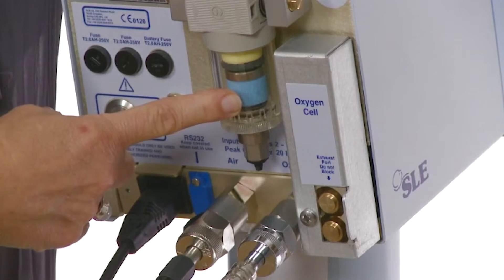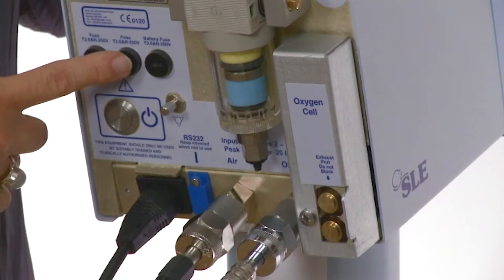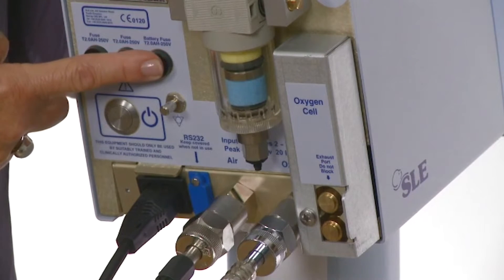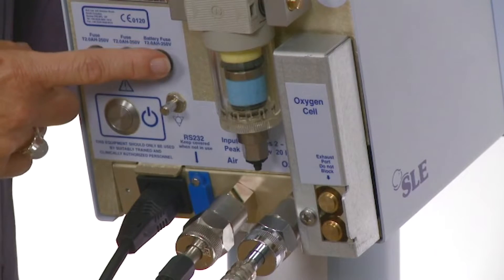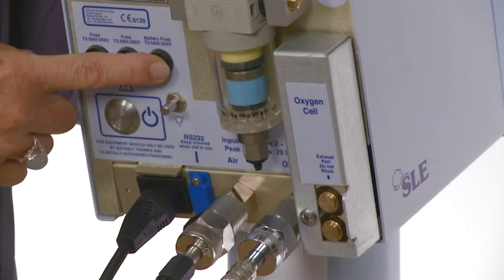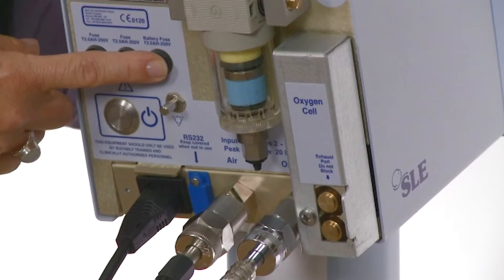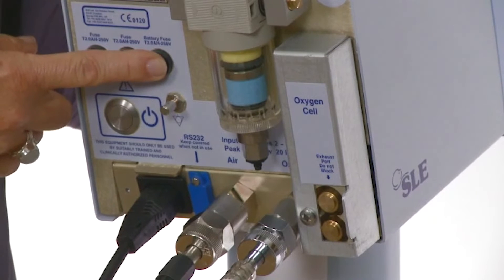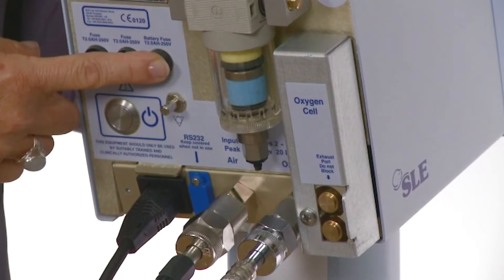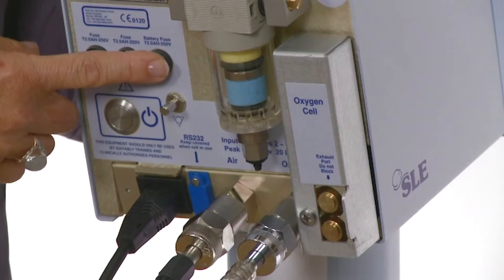To the left of the oxygen cell cover is the water trap. Directly above the mains power switch are 3 fuse holders. For the user, the most important one is the battery fuse holder, and on commissioning the battery fuse must be inserted into this holder. The SLE1000 is able to operate on battery power for up to 4 hours in the event of a mains power failure, providing the battery is fully charged. The batteries must be charged every 10 days and must be connected to a power source for 8 hours.